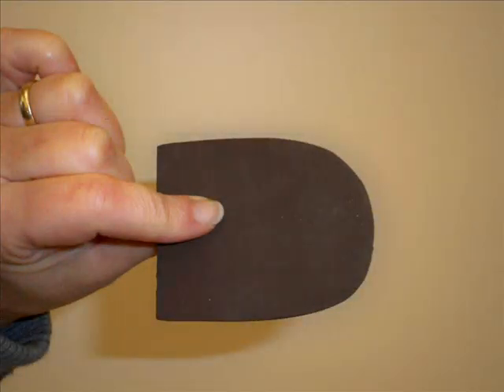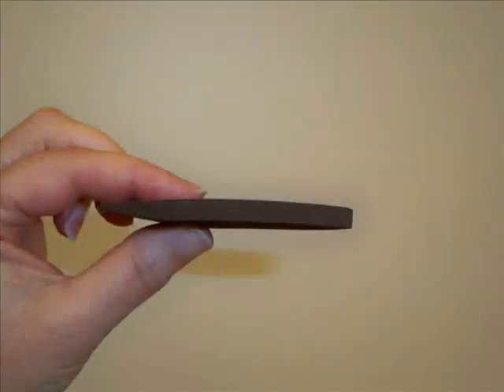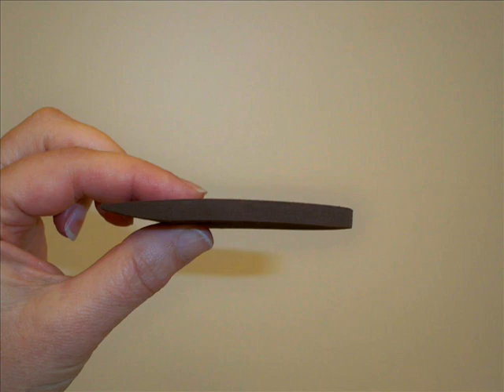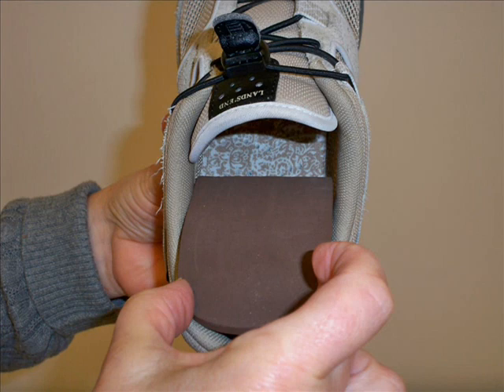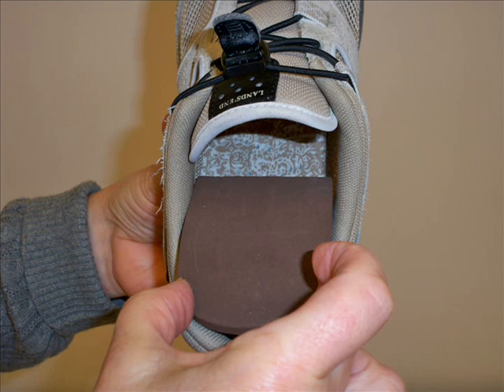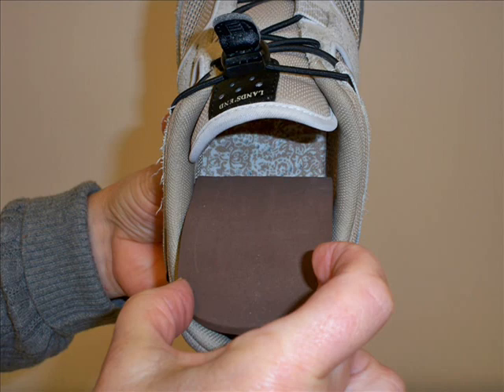This picture shows a heel wedge from the top and from the side. The left edge tapers down to a thin edge so that it is more comfortable under the foot, and the height can vary depending on the patient's needs. Heel wedges can be inserted into the shoe. An insert is very versatile because it can be moved from shoe to shoe, but it takes up space and can change the fit. A maximum of three-eighths of an inch can usually fit inside of a shoe.